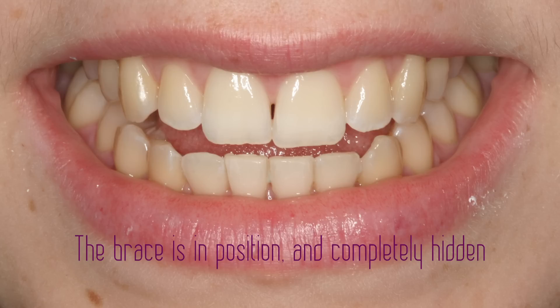And as for whether it's going to be visible — well, it's on the inside so nobody's ever going to see it. Some people think it's going to cut their tongue up, but if you've got just a few teeth especially at the bottom it hardly affects you in any way at all, so this is pretty much the gold standard of all braces.